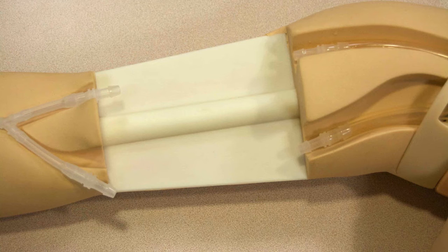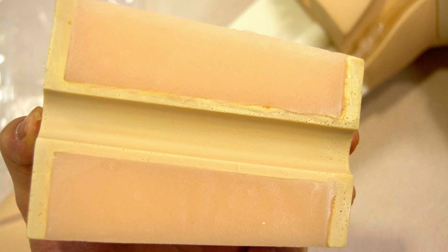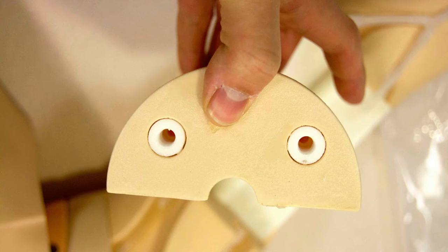You can see the portion here where the ultrasound phantom insert attaches. You can see the ridge that seats the phantom along with the articulation and the joints for the blood vessels both at the distal and proximal end of the arm. The ultrasound portion has ridges on both ends with the ultrasound phantom material in the middle where you can ultrasound through to see the vessels. On the back of the phantom is a groove that seats on that ridge on the arm to seat the phantom properly. On either end are inserts in order to plug in the tubing from the blood vessels.